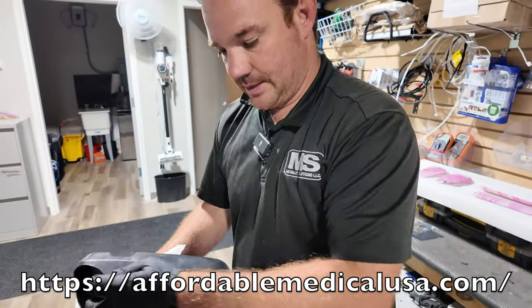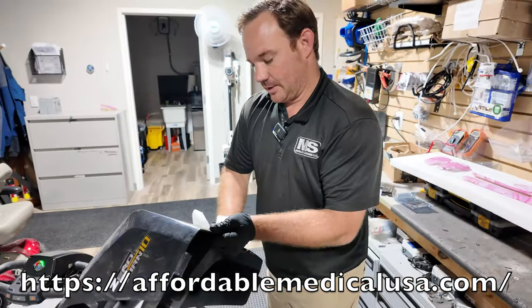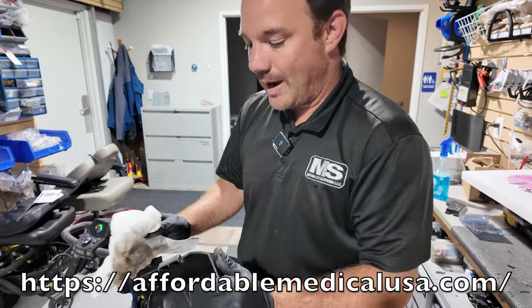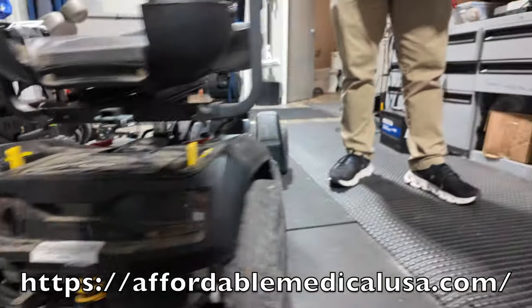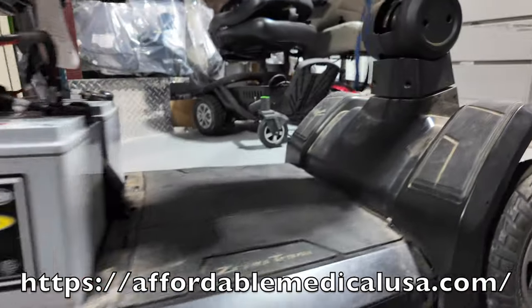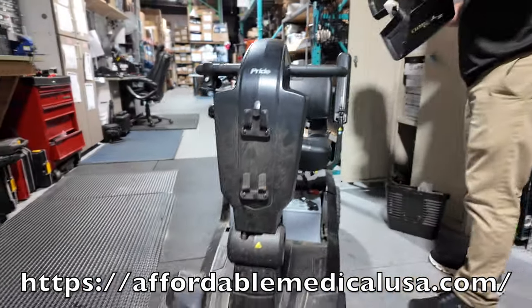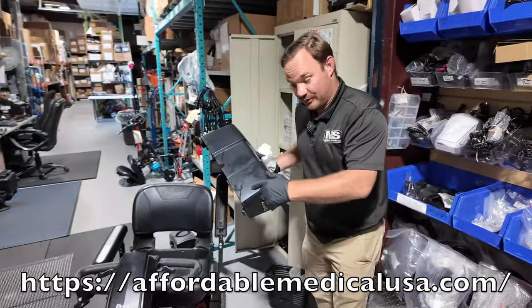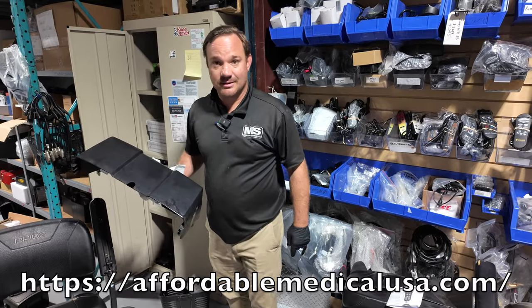I got a Zero Turn ZT10 — it's a little dirty because the guy's been using it outdoors. I don't really sell it as a primary outdoor unit, but if you live at a nice resort or a big retirement center and you need a full-size scooter that holds up to 400 pounds with zero-turn technology because you're scared of a three-wheel, then yeah, this is the ticket.